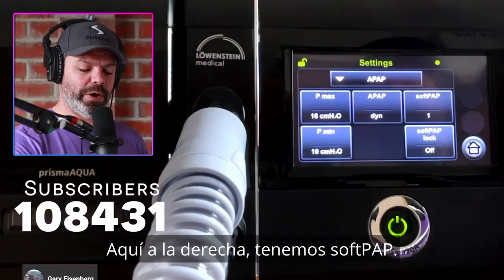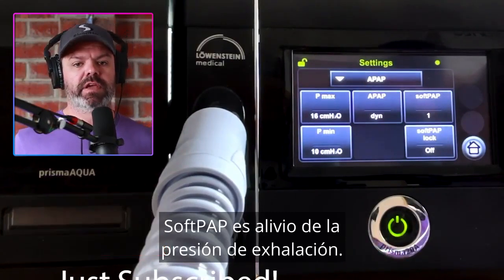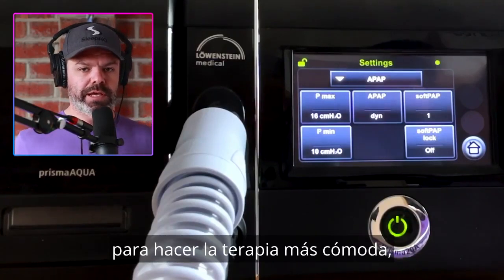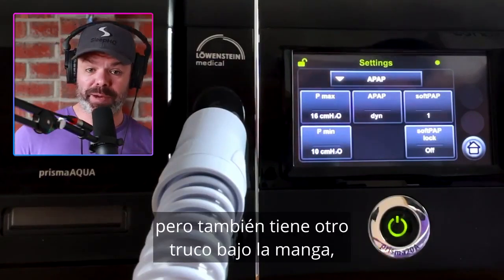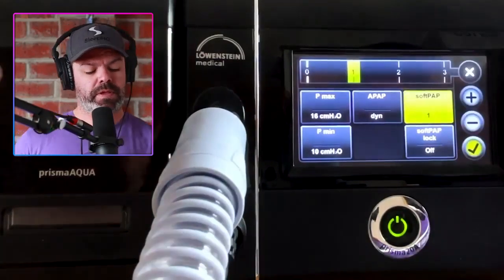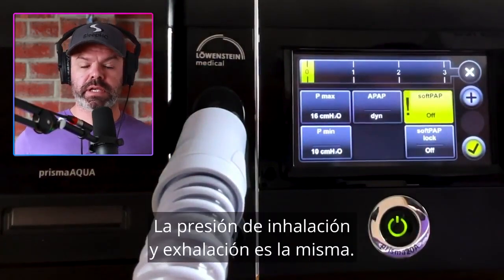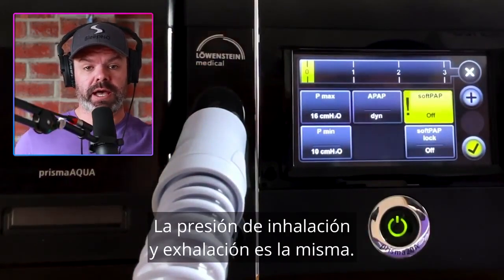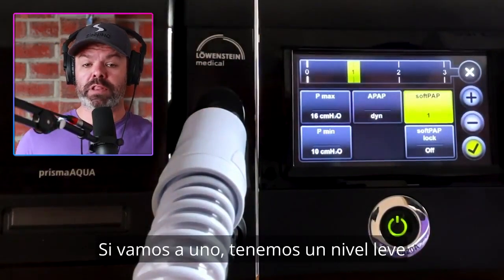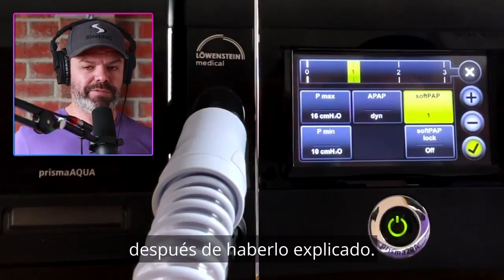Over here on the right we have soft pap, which is exhalation pressure relief. It drops the pressure as you exhale to make therapy more comfortable, especially at the higher levels, but it also has another trick up its sleeve. When soft pap is on zero there is no exhalation pressure relief — inhalation and exhalation pressure are the same. At level one we have a mild level of exhalation pressure relief, and I'll give you a demonstration after I've explained it.